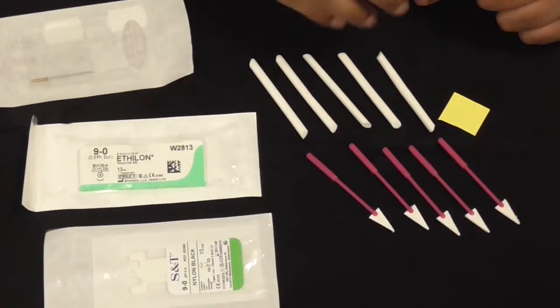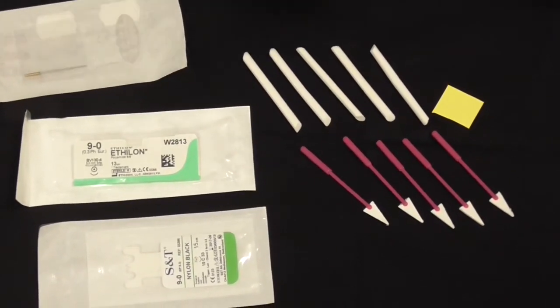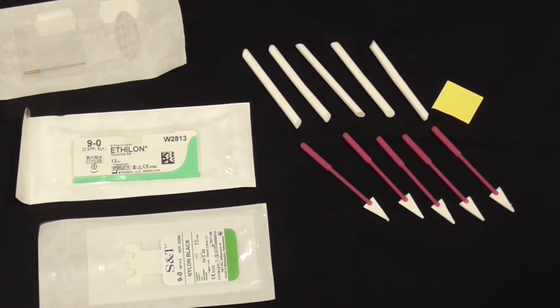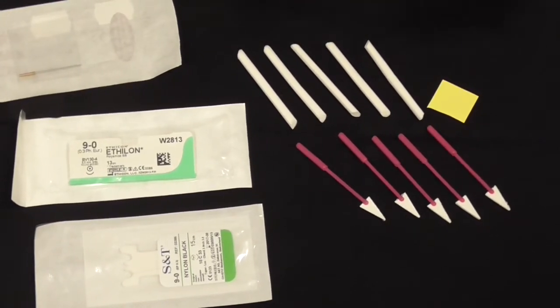These are little bits and pieces that are extra to microsurgical practice but quite useful, and one should know about them before starting microsurgery practice. That will essentially cover the instruments, the microvascular clamps, and all these other bits and pieces—essentially the microvascular kit in a nutshell. Thank you very much.